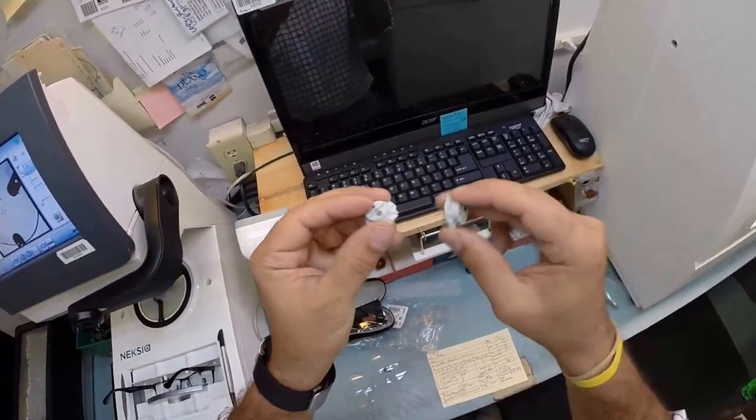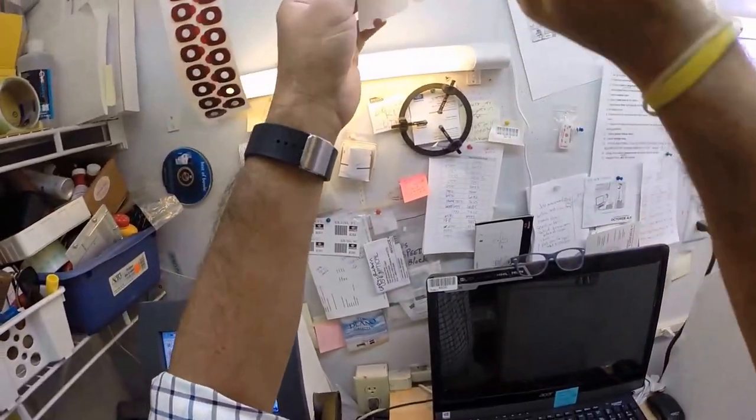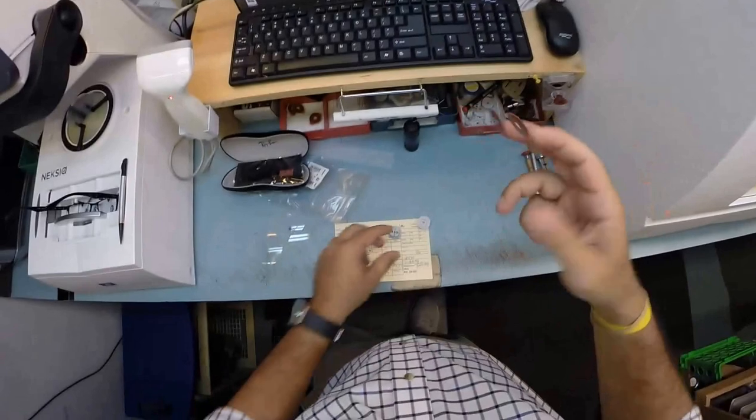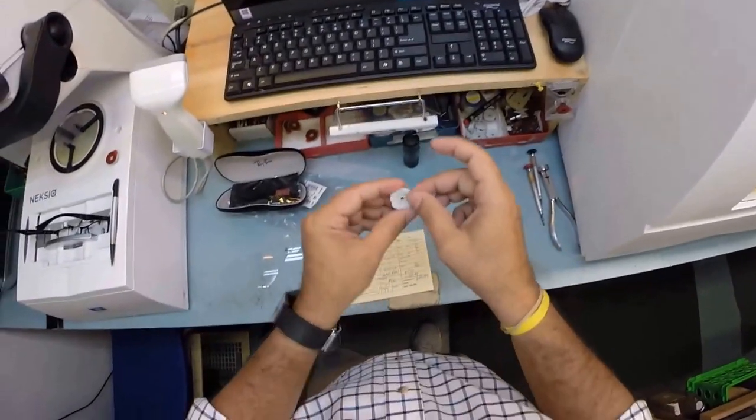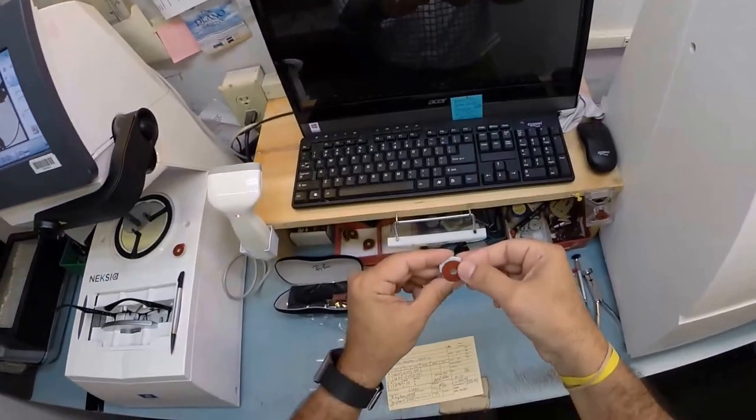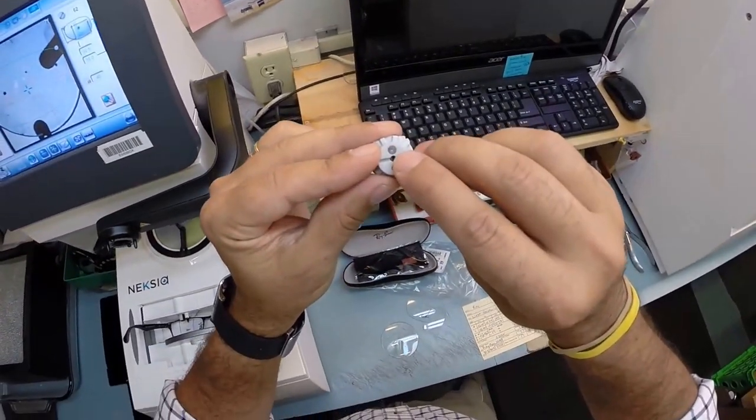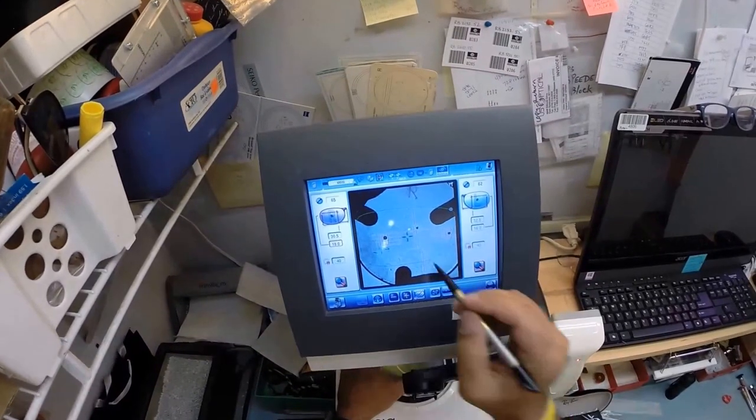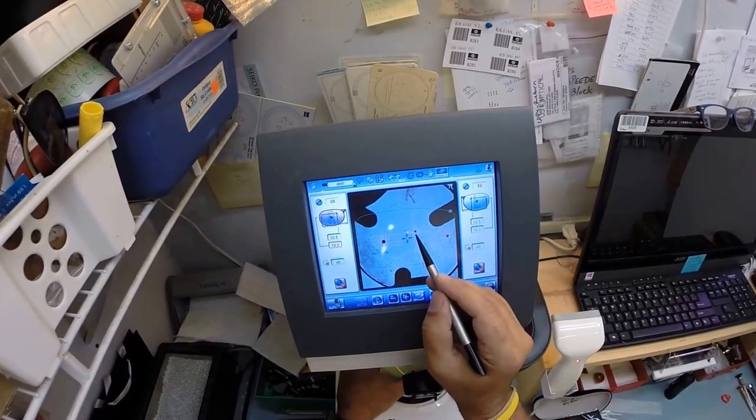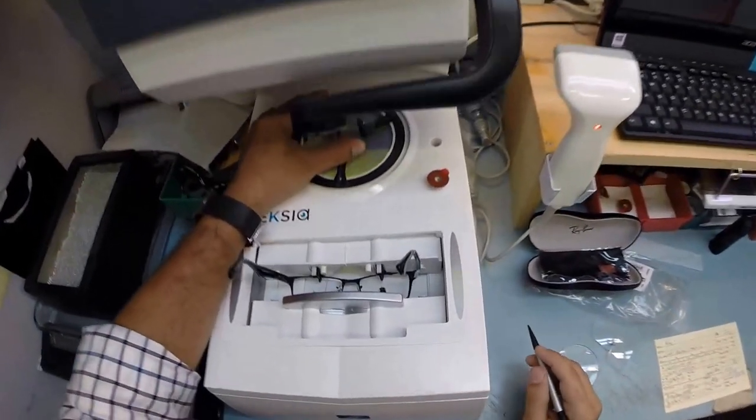I need to put the block in there. I like to call them Jenny from the block. I need to attach this to your lens while it is cutting. So I need a double sided adhesive sticker. The black side is the sticky side. I'm going to stick this one onto the first block, place it on yonder platform. Place the second one on there, pull the paper away to make the black side sticky. On the back is a magnet. It's going to do its job twice tonight.